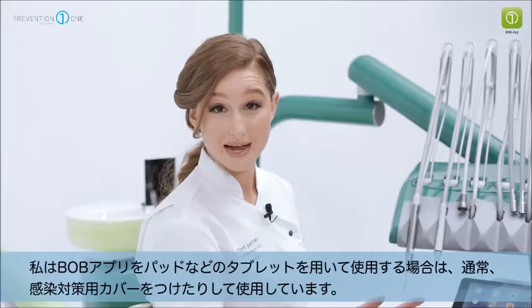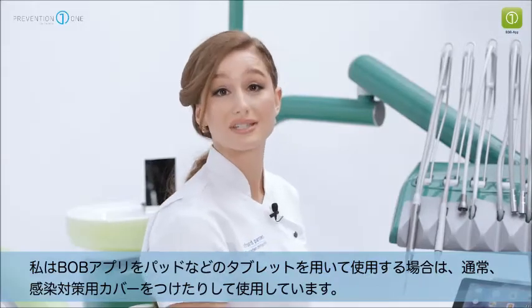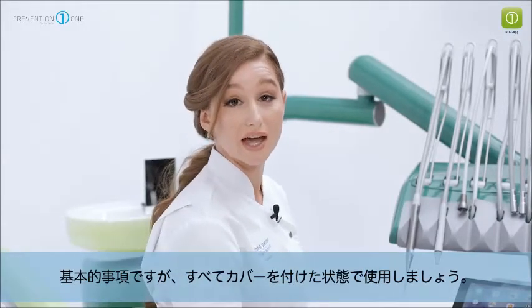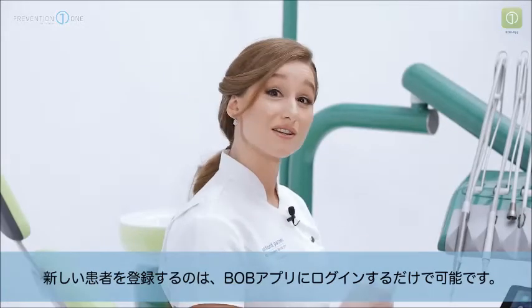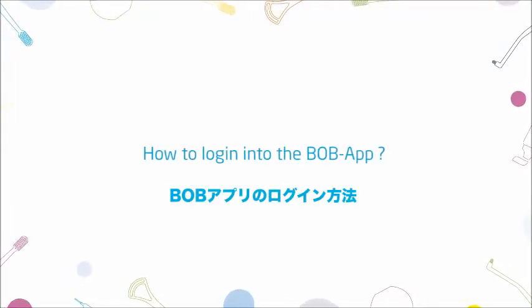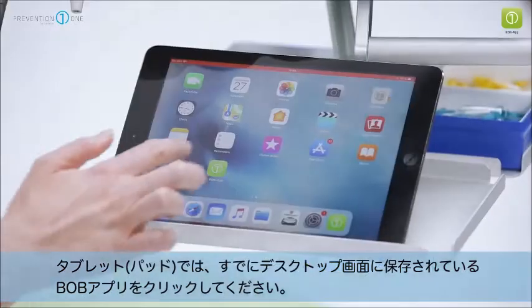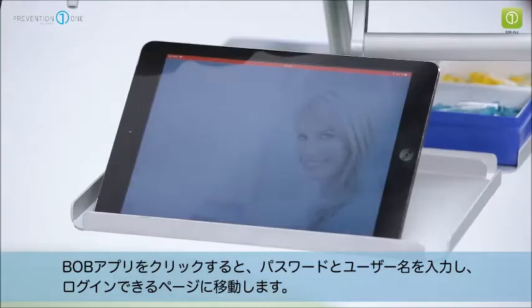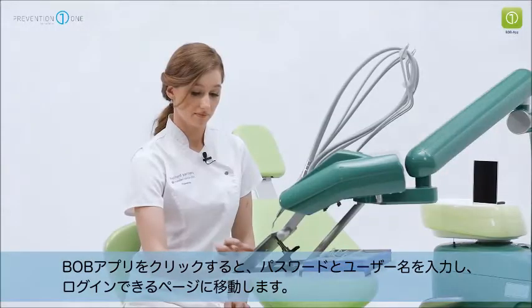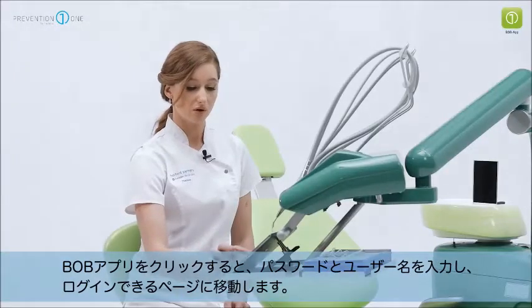I like to use the Bob app on a tablet in clinic. Usually I would have the tablet in a cross infection control sleeve, and it is very important to mention that for all procedures you too should be covering it with a sleeve. So before I call my new patient in I'm just going to log into the Bob app. The Bob app is already saved to my home screen and by clicking on it I'm able to input my username and password and log in.